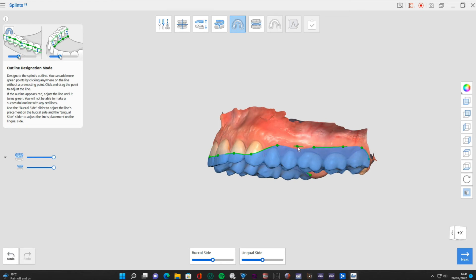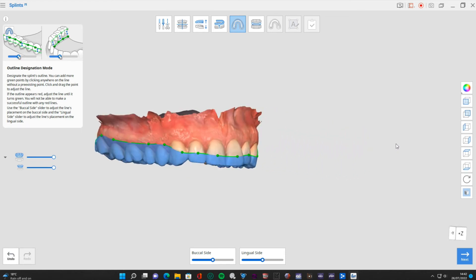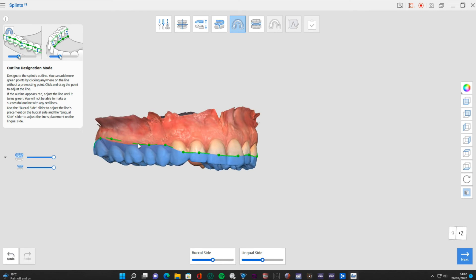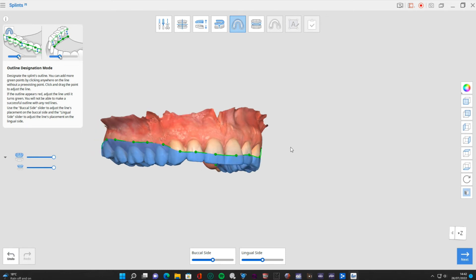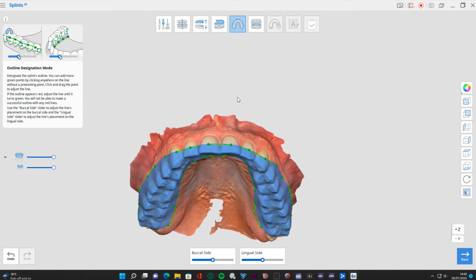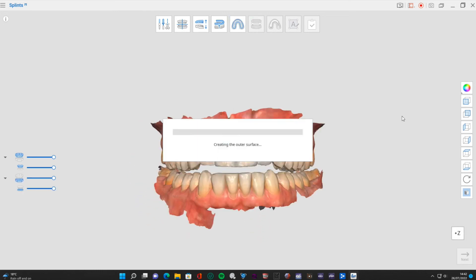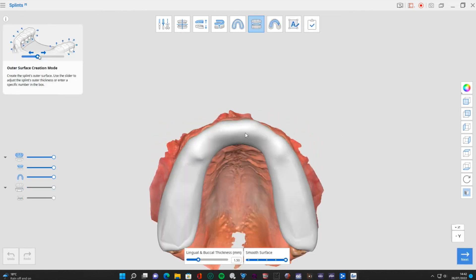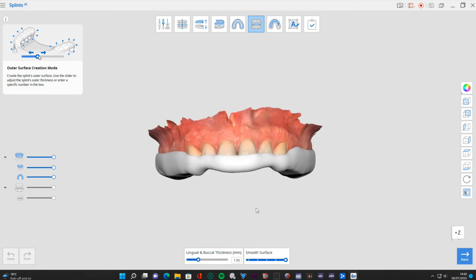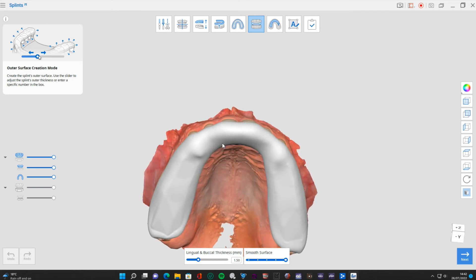I want to cover that a little bit more to rule out any interaction with the gingival margin - just my own preference so I don't have things sitting right at the edge. At the front I'll dip it down so it feels a little bit thinner for my lips - that's just personal preference from wearing gum shields a lot. In this next stage, lingual and buccal thickness: 1.5mm is probably about right.